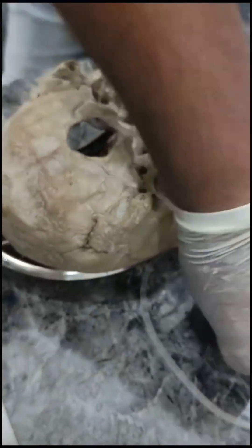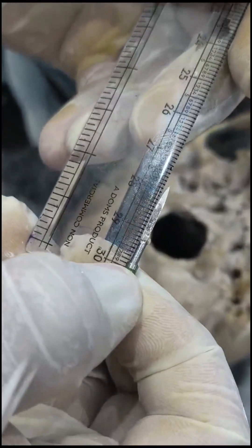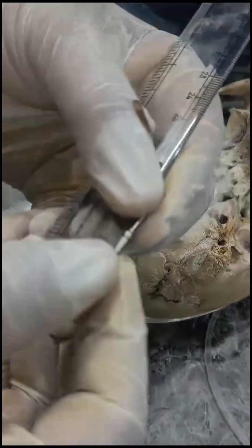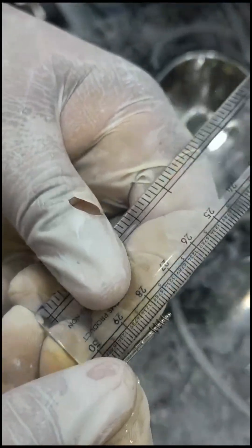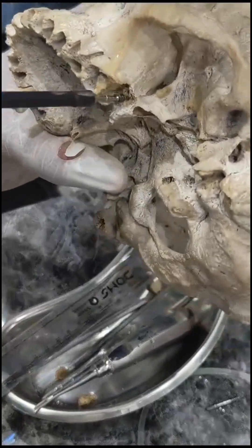The length stands out to be 22 millimeters. We have multiple dummy implants here. The length of the basal implant is measured from the neck — from this particular point. We need to engage an implant 22 millimeters long, which precisely fits our requirement.